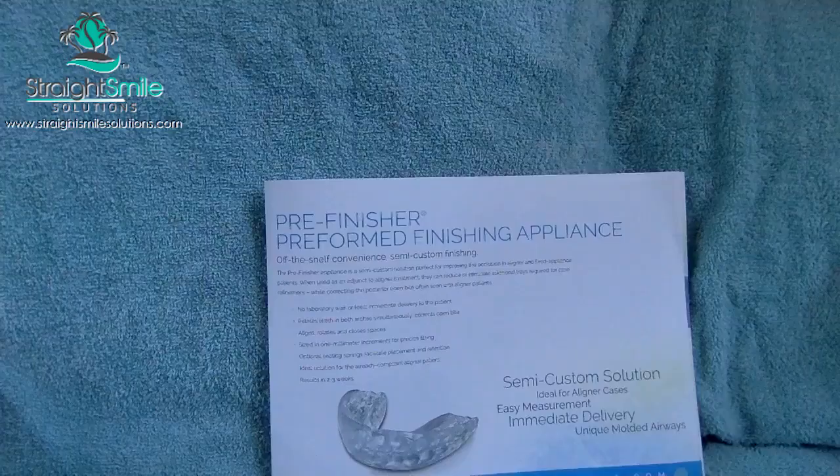That way your case can be done faster. I'm a huge fan of anything like this because it really does promote nasal breathing, and there's a lot of forgiveness — if you haven't worn your retainers for a little bit and you put one of these back in, it's going to get straight again. I'm very uncomfortable finishing an Invisalign case in just two sets of plastic because the bite is never fully interdigitated. This is probably the best option after every aligner case to achieve that perfect cusp-fossa relationship and full balanced occlusion. Contact Julianne at TP Orthodontics to learn more.